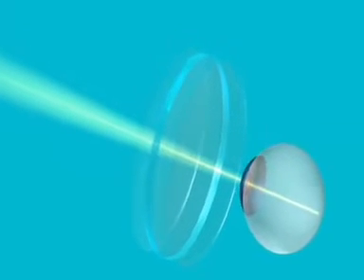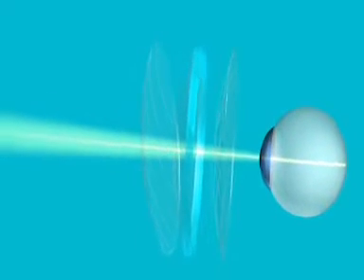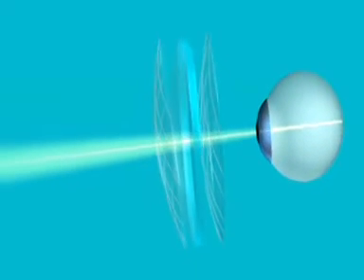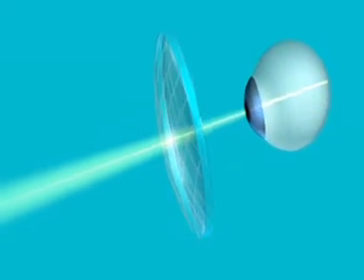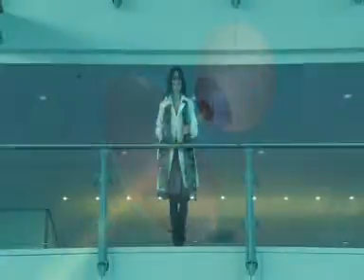Hoya introduces a new multifocal design with some eye-catching features, combining ID freeform design technology with a new advanced back surface design, with a greater power of attraction for your target group.